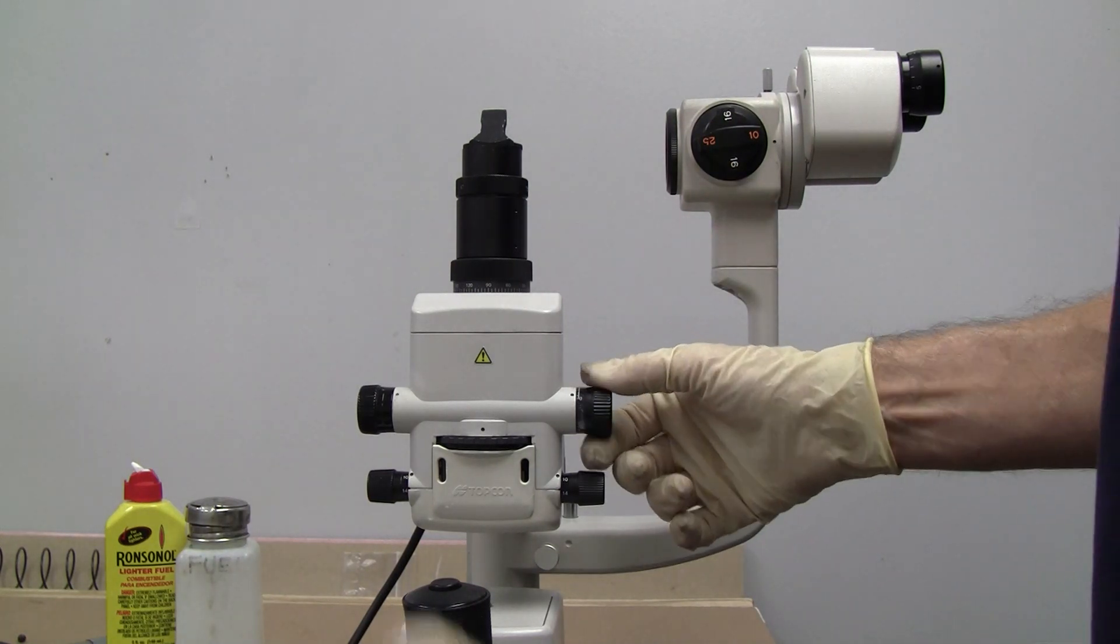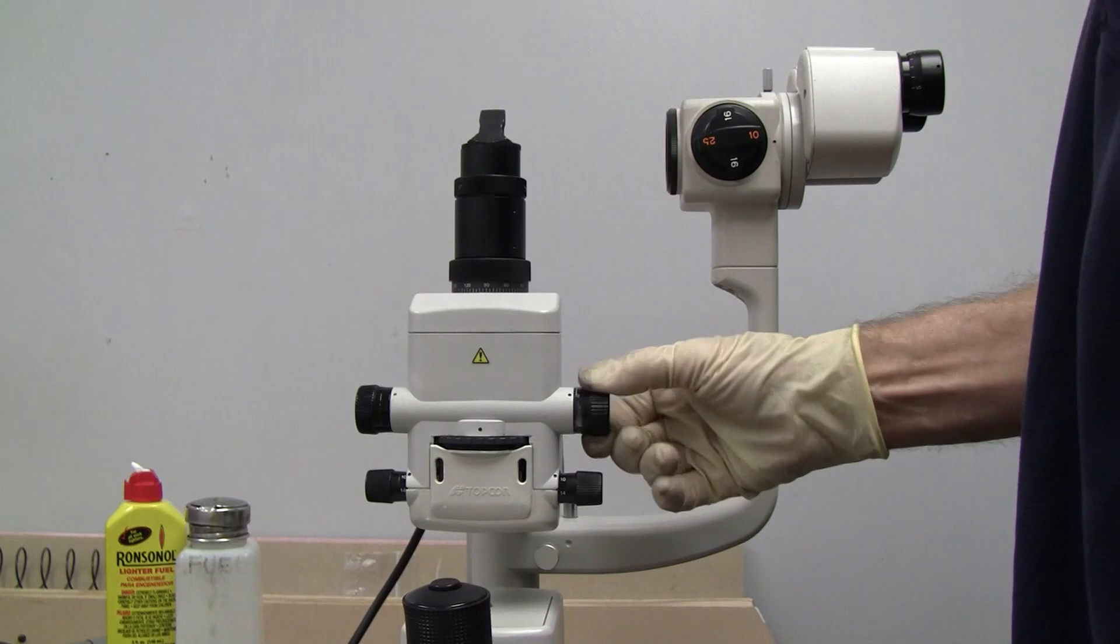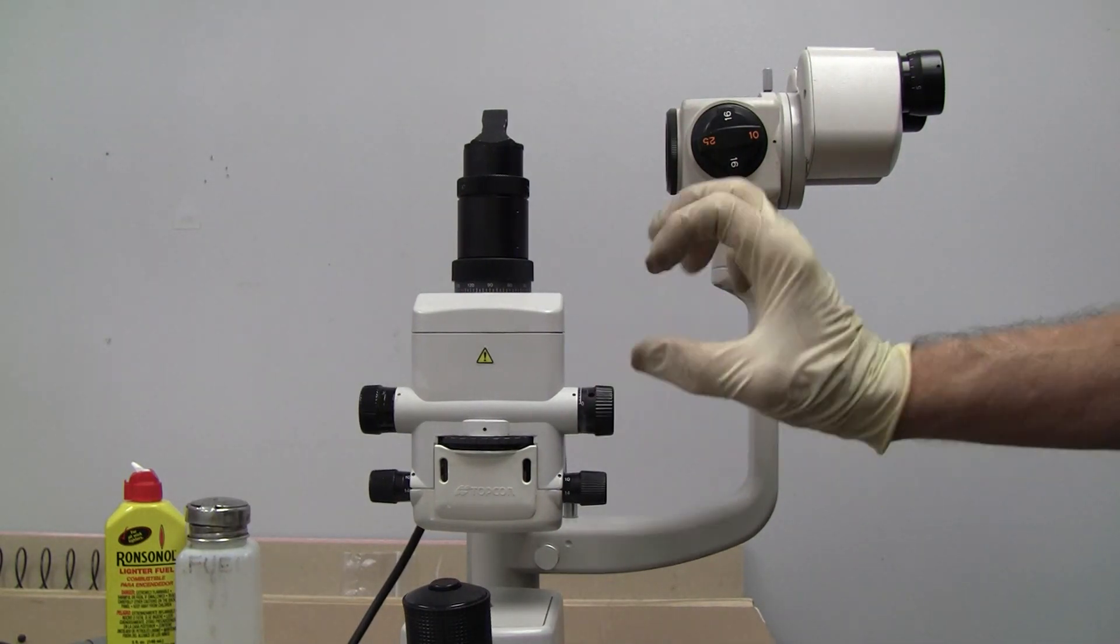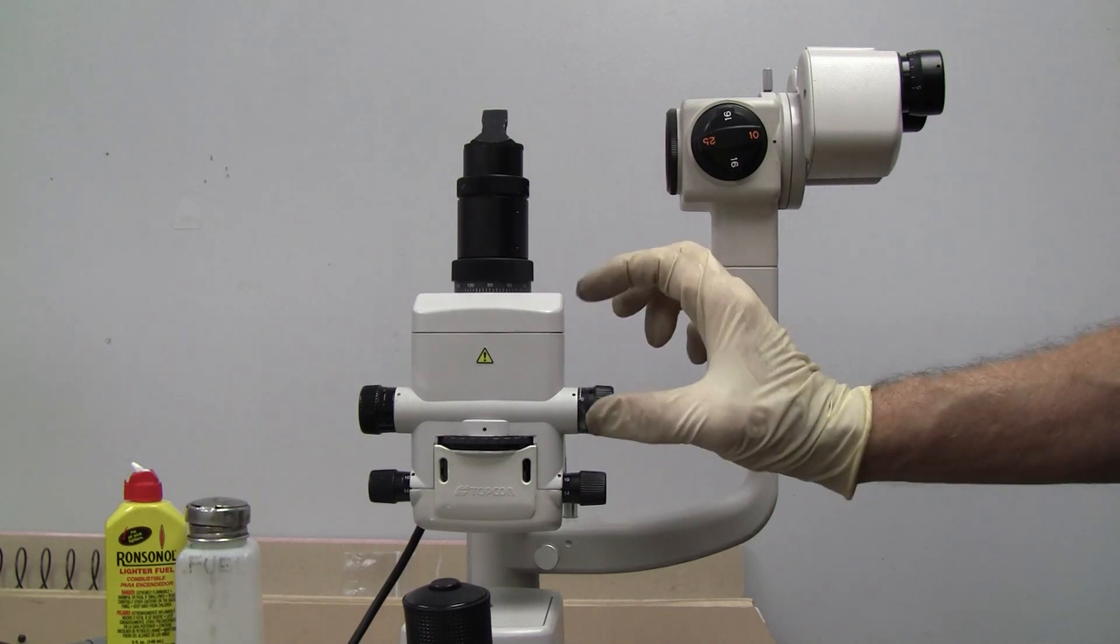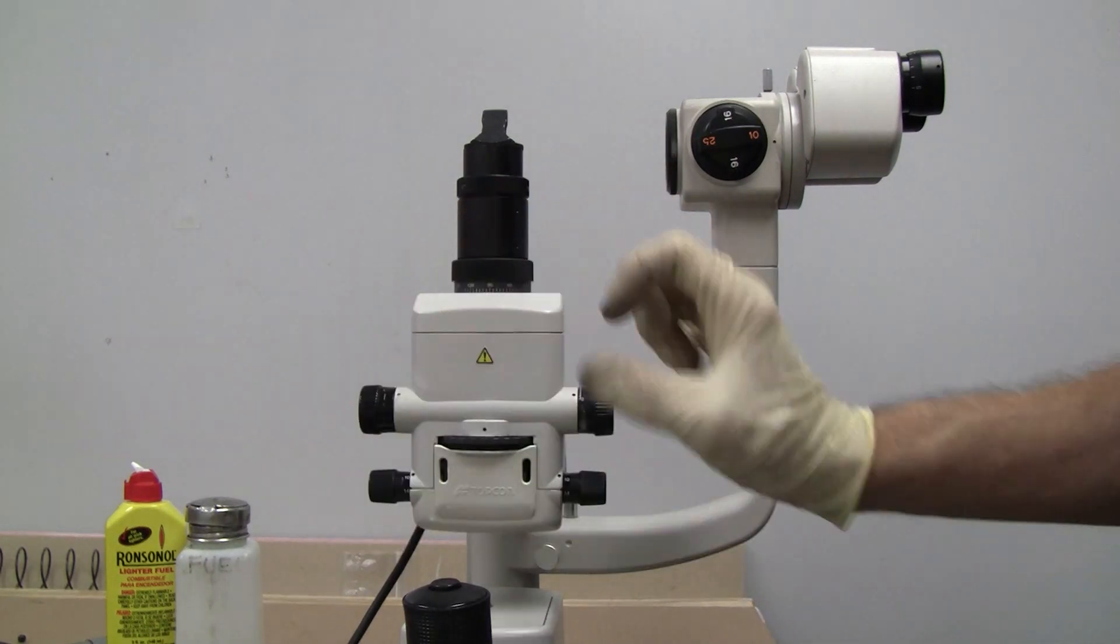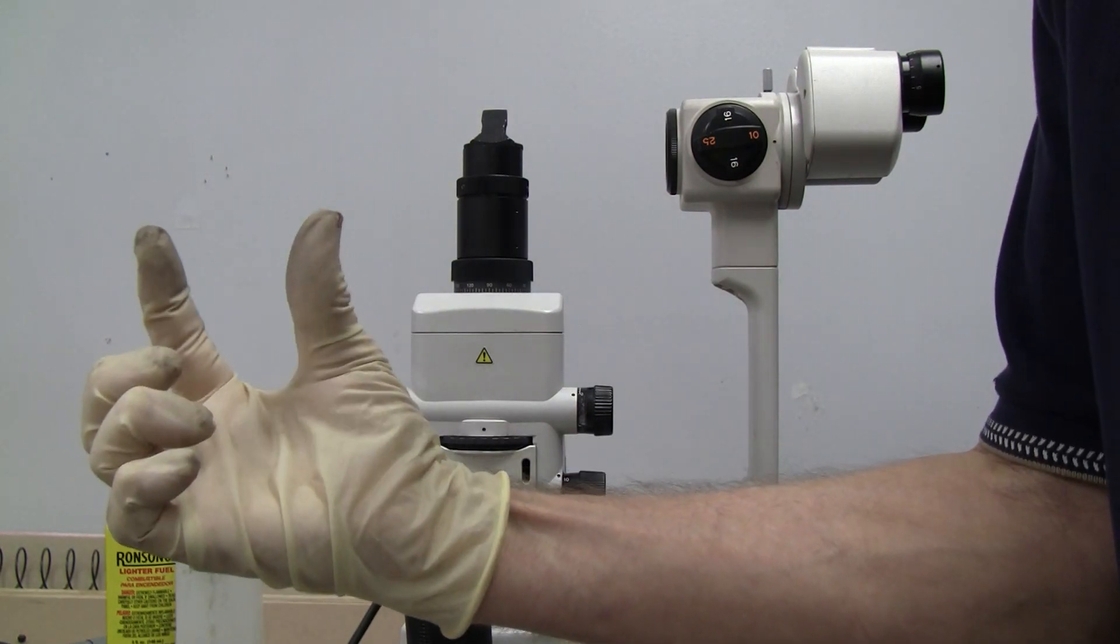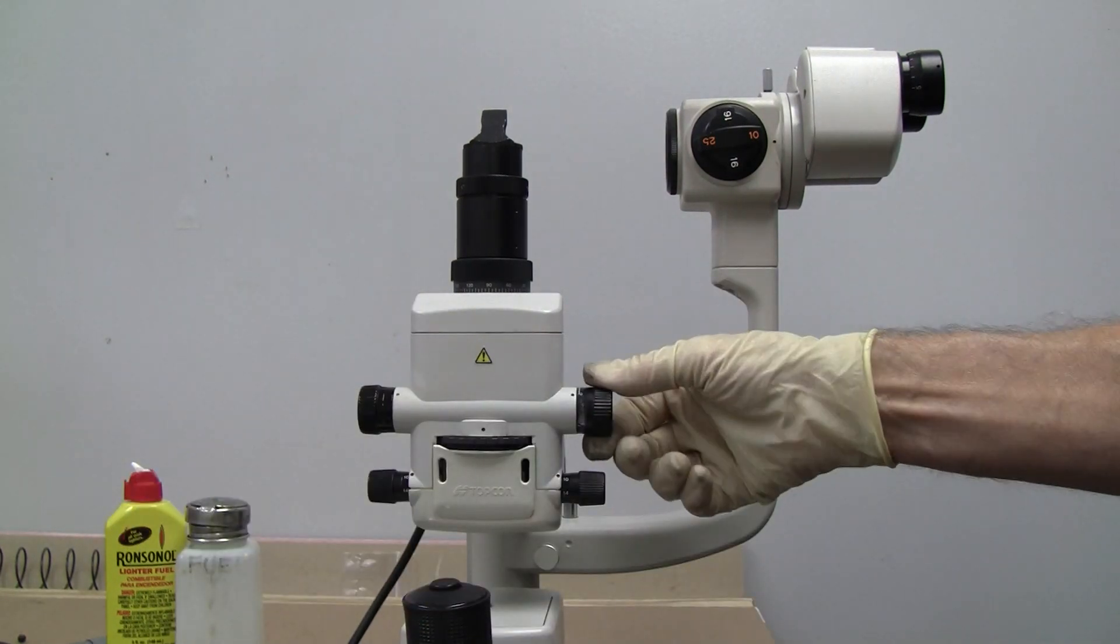So this time we're not going to correct the slit drift. What I mean is you turn it and it kind of keeps closing, or you open it and it just kind of starts closing by itself. That's drifting.